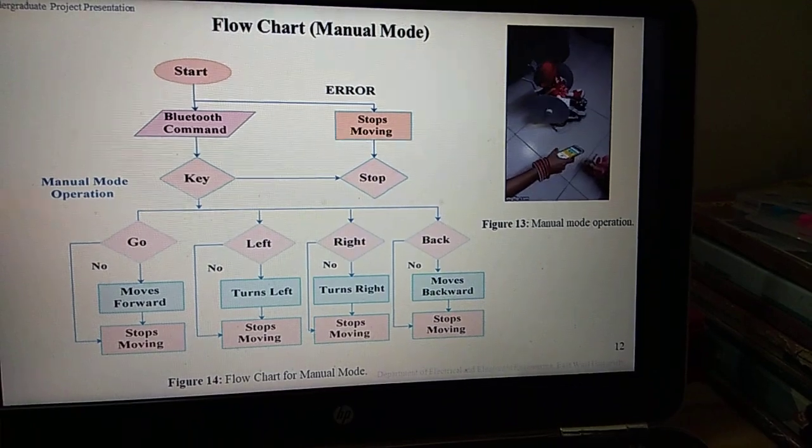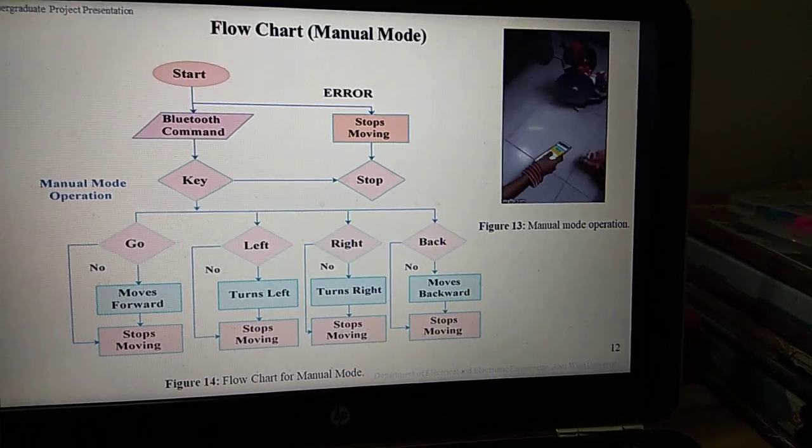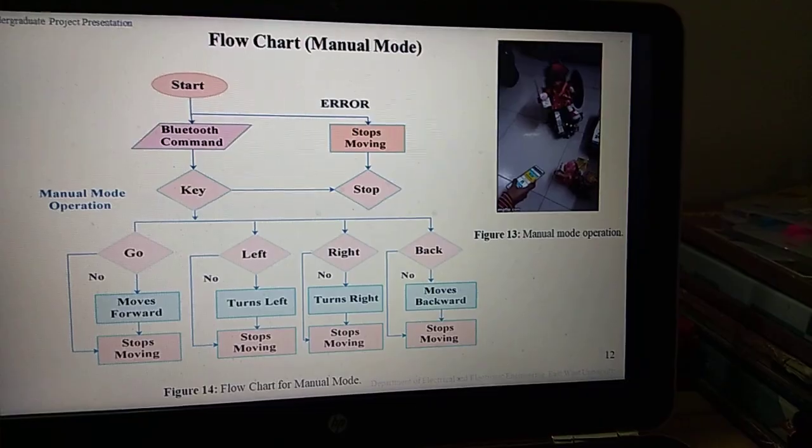In order to disconnect the wheelchair from manual mode, we have to disconnect the paired Bluetooth module.